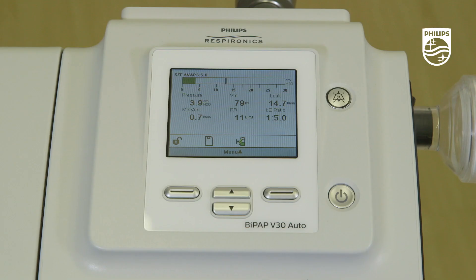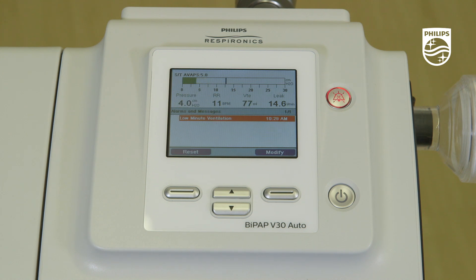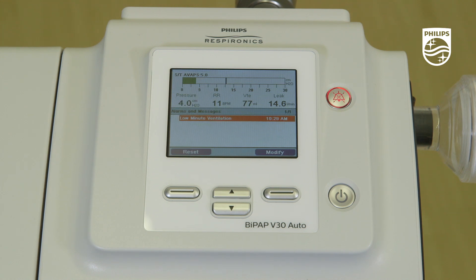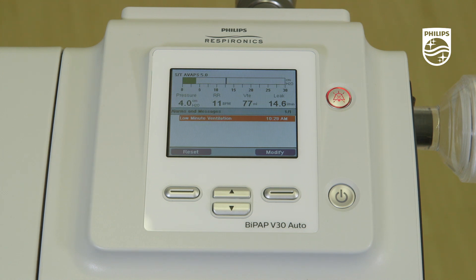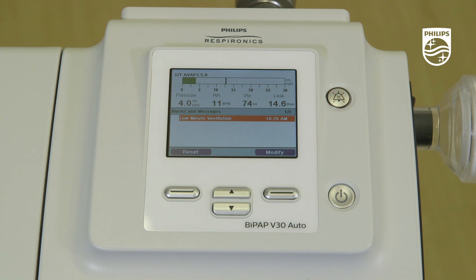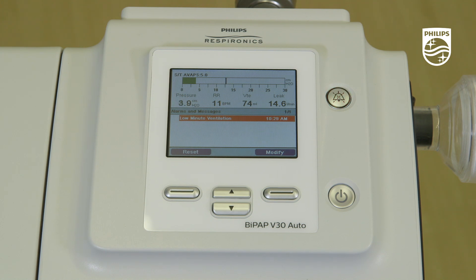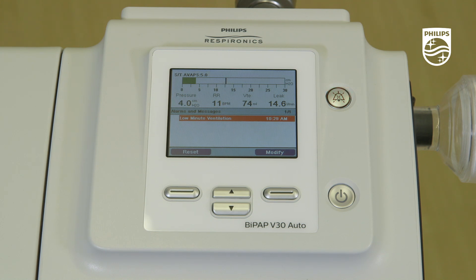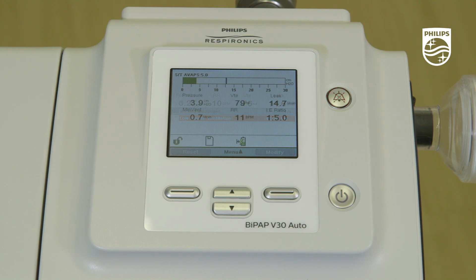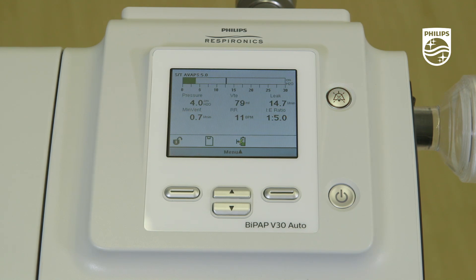The V30 Auto has a full complement of patient and system alarms, as well as information messages. In the case of each of these high priority alarms, the V30 will continue to operate and the audible sound will terminate once the alarm is resolved.